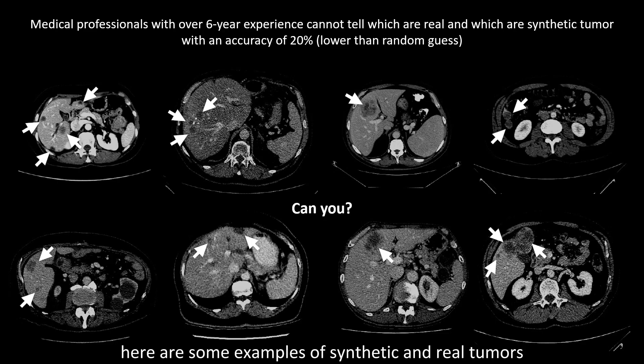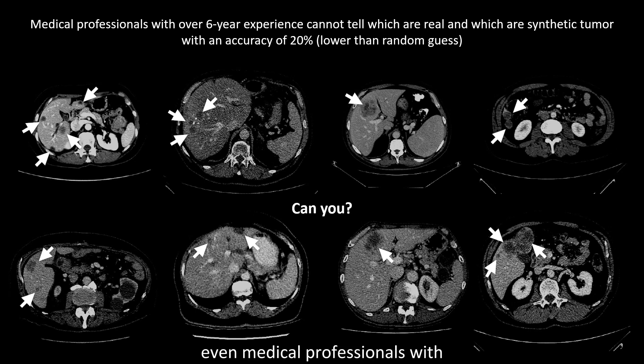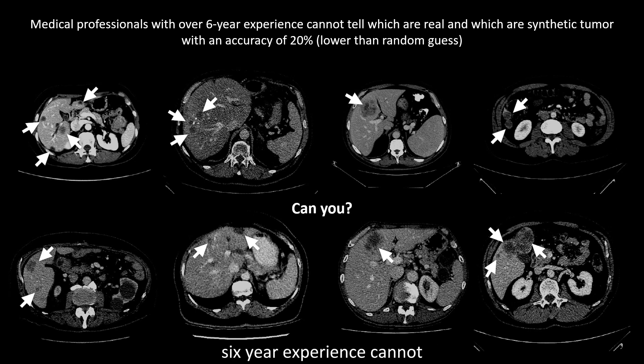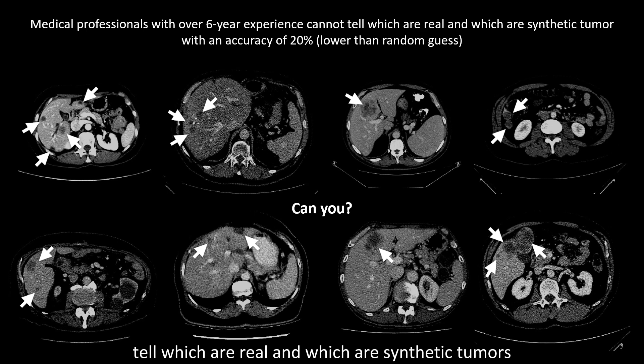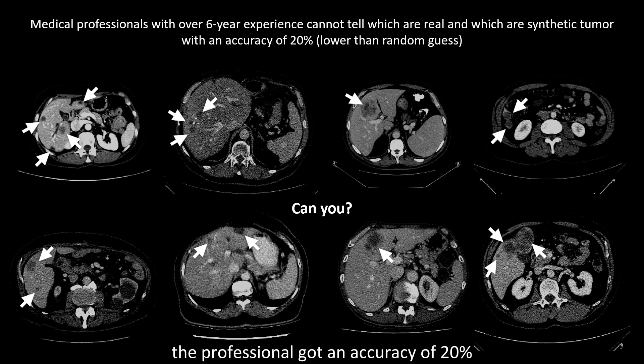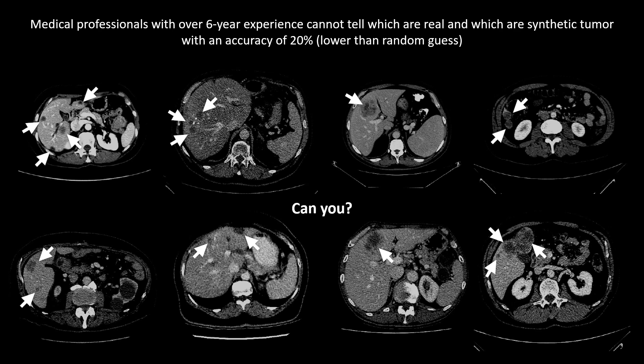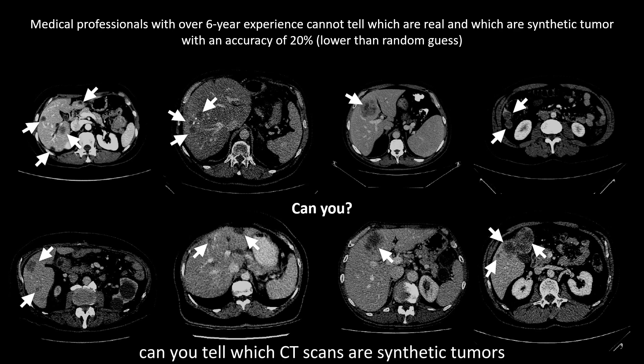Here are some examples of synthetic and real tumors. Even medical professionals with six-year experience cannot tell which are real and which are synthetic tumors. The professional got an accuracy of 20% on the visual Turing test, which is lower than a random guess. Can you tell which CT scans are synthetic tumors?